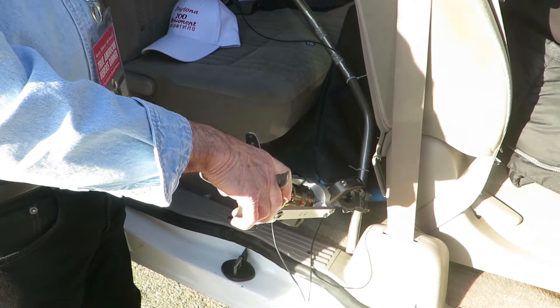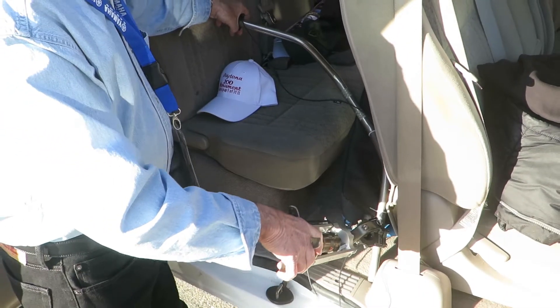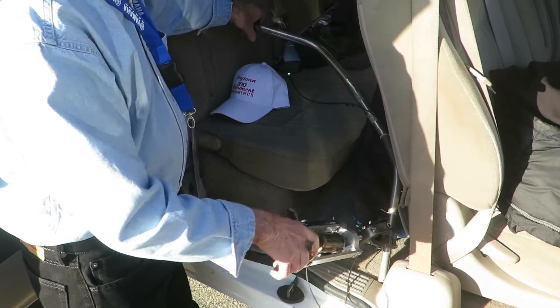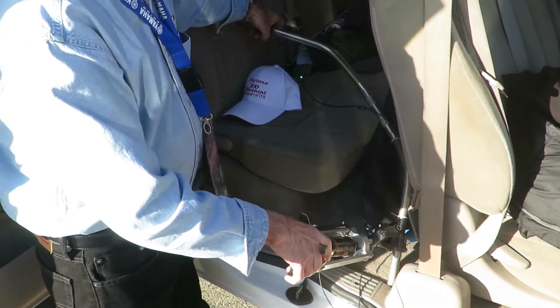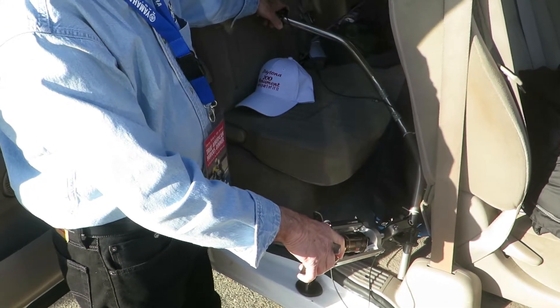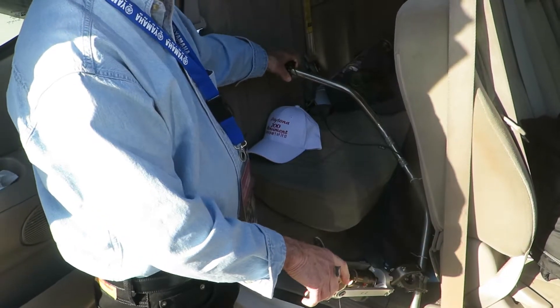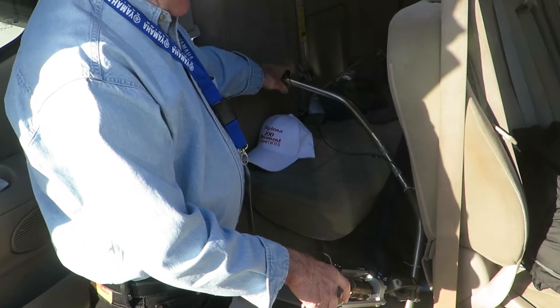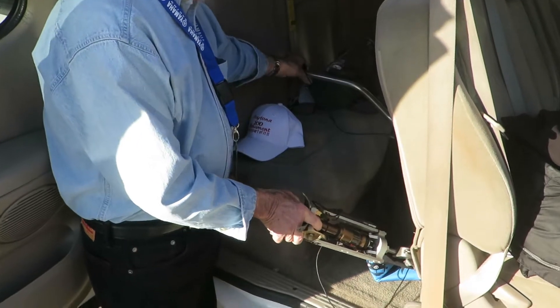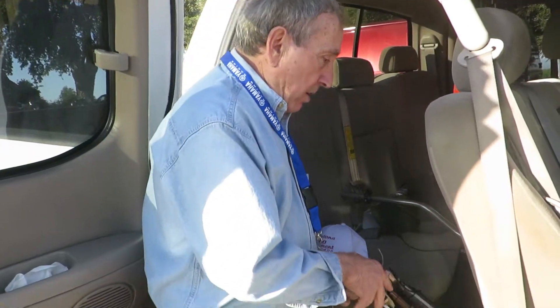It's an electronic shock. When I turn the switch — if I come to a hill and I want to stop it and make it rigid so I can use both arms to stop — I just click it over like that and that's rigid. Then I can go back here and I'm back to travel mode. The green light that's flashing is telling me that I've changed gears. Halfway between is medium dampening. The thing is, you don't really appreciate it unless you're an amputee — when you try to go downhill or trail ride with only one arm, you can't really be very aggressive.